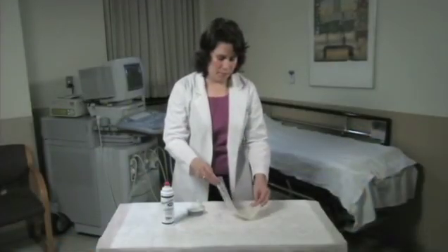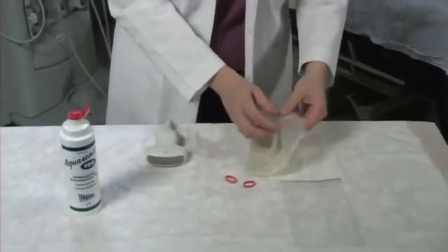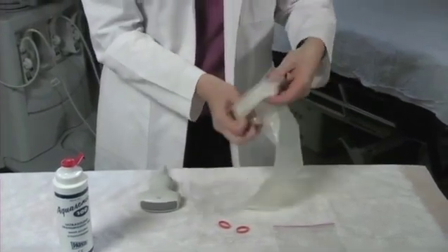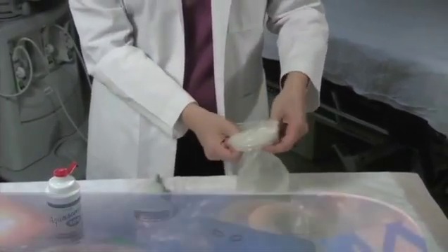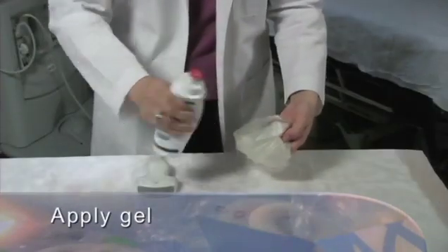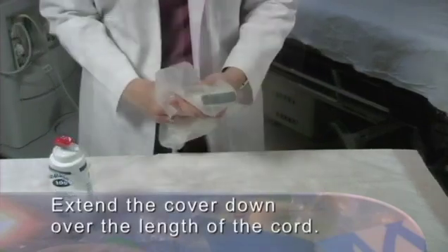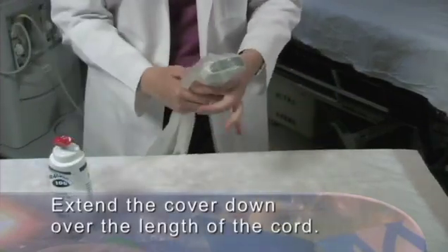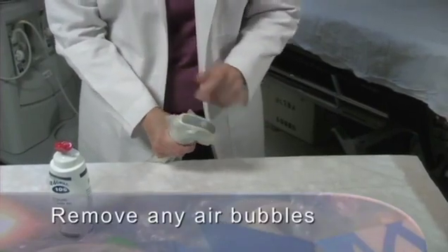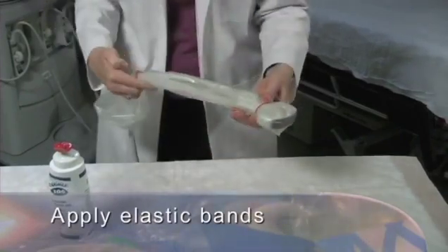We are working with a clean but not sterile transducer and a non-sterile probe cover, such as you might use for routine scanning when there is potential for contamination of the transducer with blood or body fluids. Create an opening in your cover for gel, then apply gel in the transducer cover. Once the gel is in the cover, place the transducer in the cover and extend the cover down over the length of the cord. Check carefully and remove any air bubbles that are between the transducer face and the cover. Apply elastic bands to secure the cover in place.